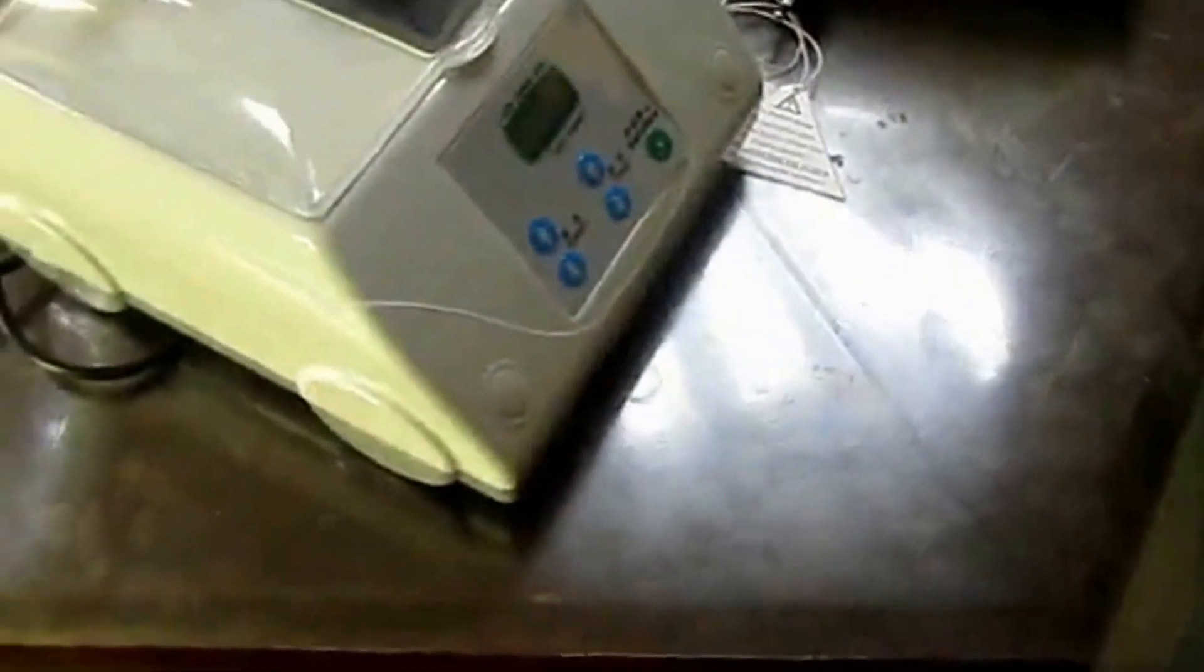Now let's show you how to use it. First, turn on the switch and press the black switch at the rear of the device. The screen will light up.